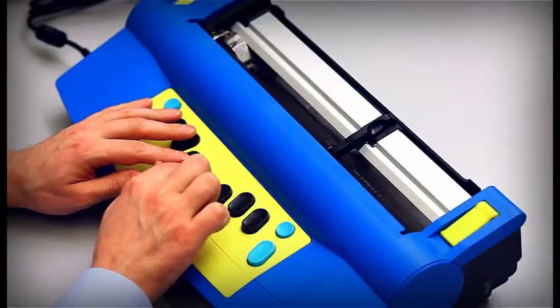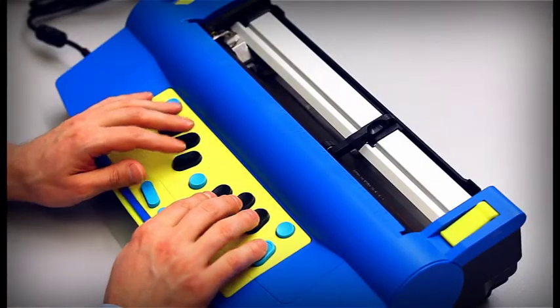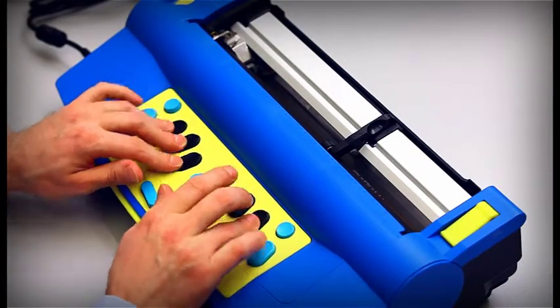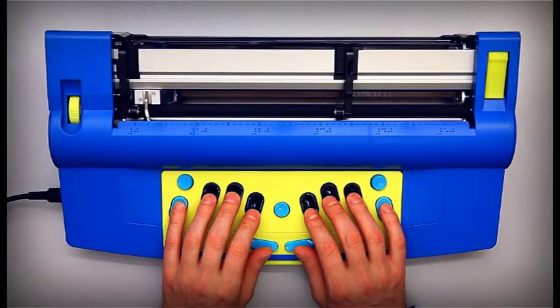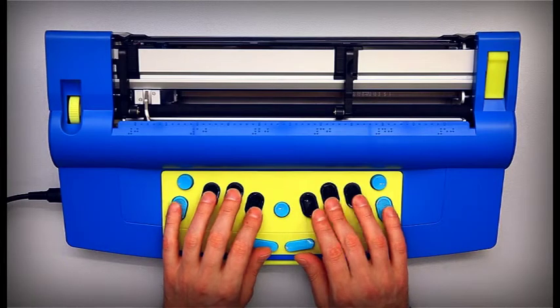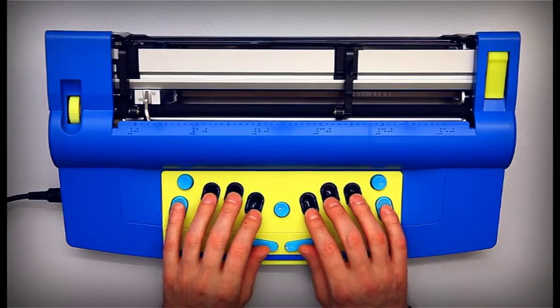Press the Command key, then ADV and Enter. Because you are going to type without paper, you need to turn embossing off. Press Command EM ENTER and you are ready.